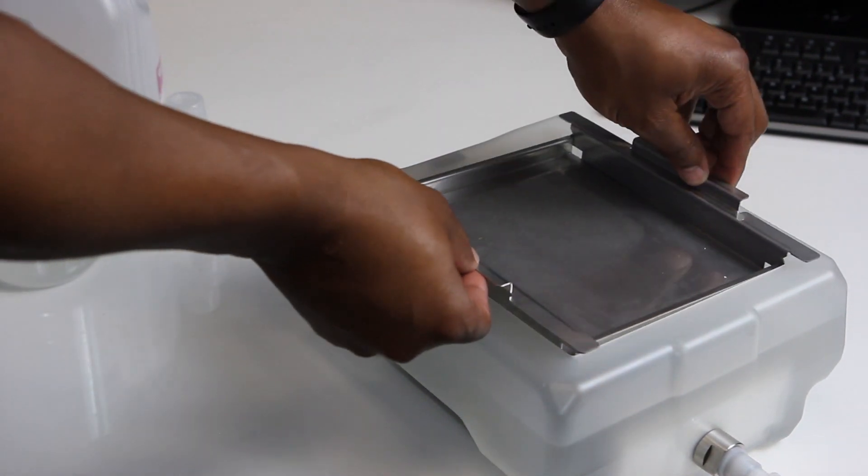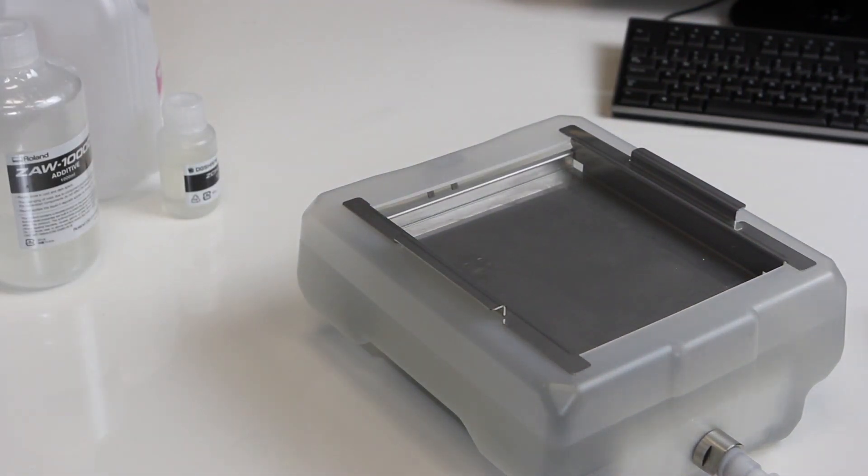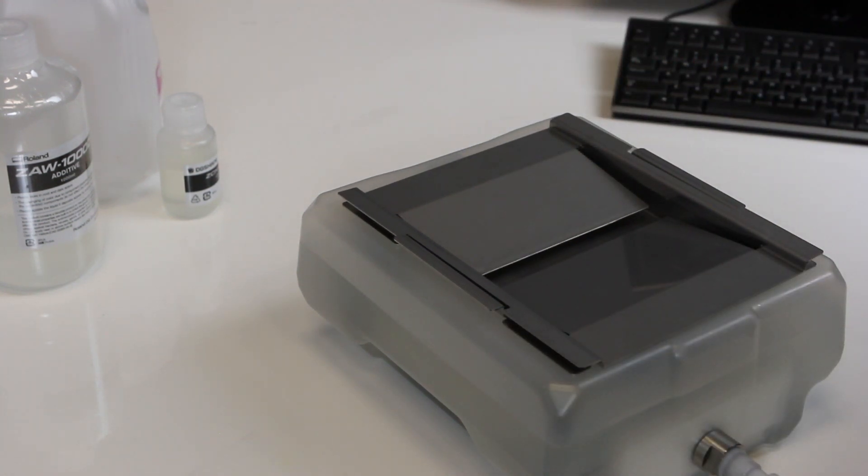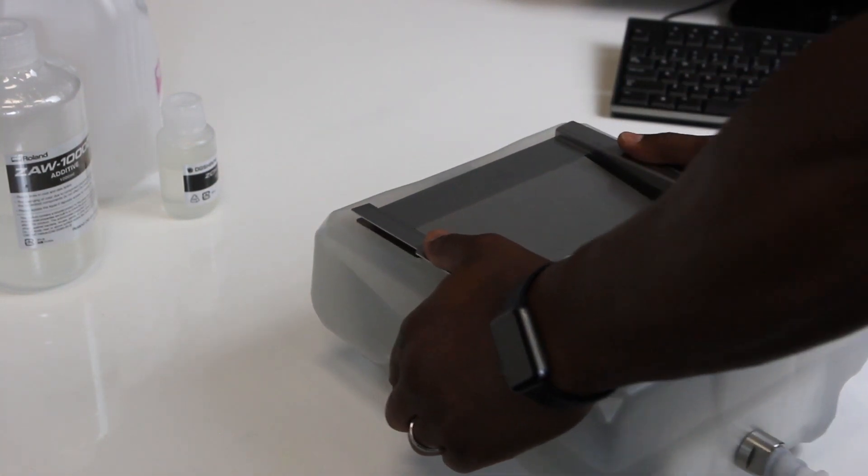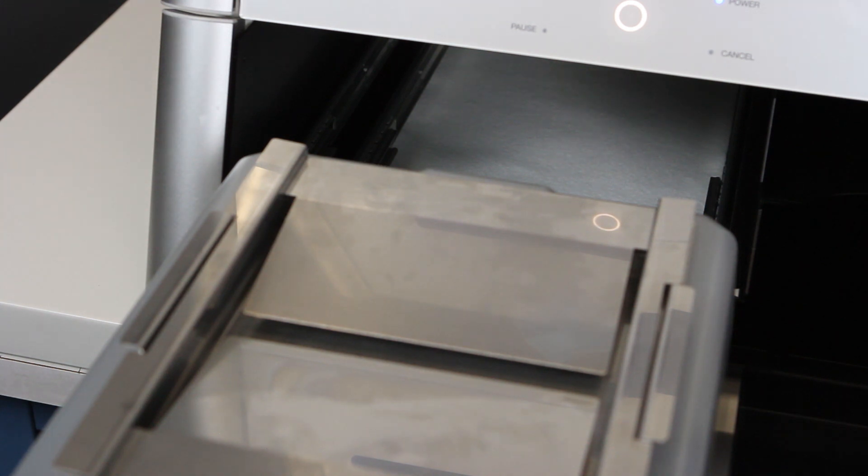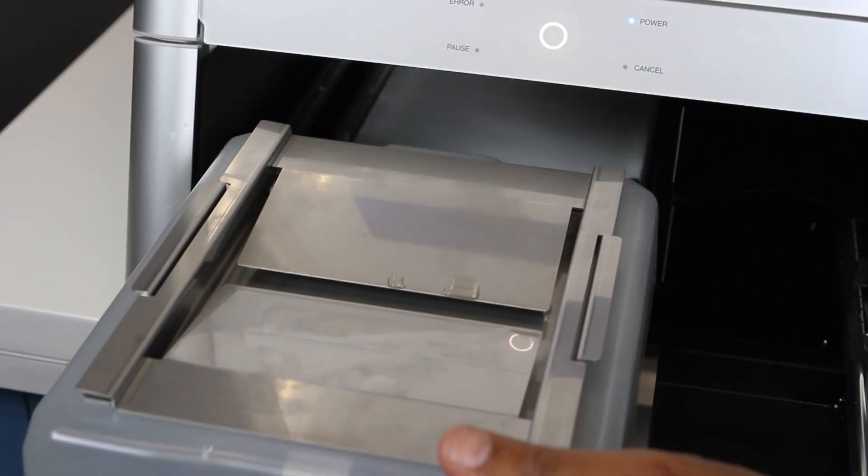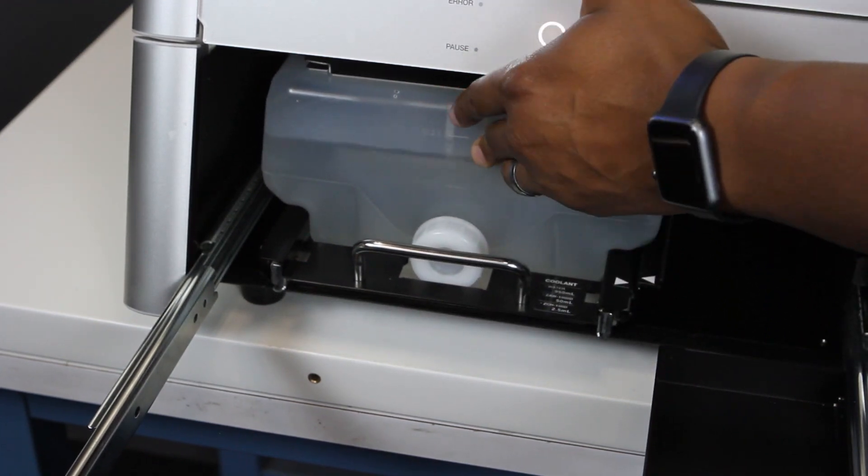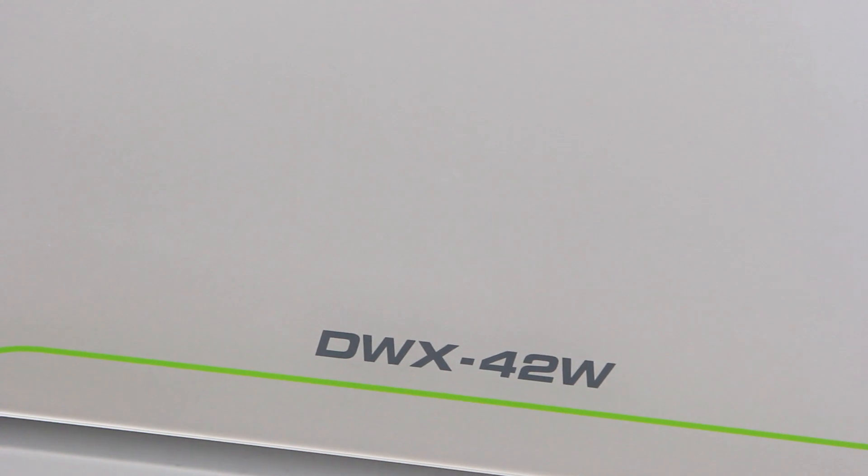Place the tray into the coolant tank, then place the tray lid into the tray. Grab both sides of the coolant tank with your hands and place the coolant tank back into the rack. Push the rack back into place in the bottom cover. Be sure to confirm both arrows on the rack line up to ensure the coolant tank was inserted correctly. Close the bottom cover.